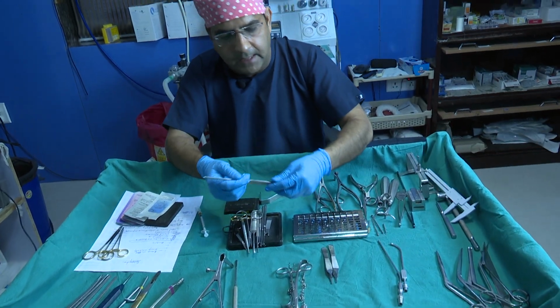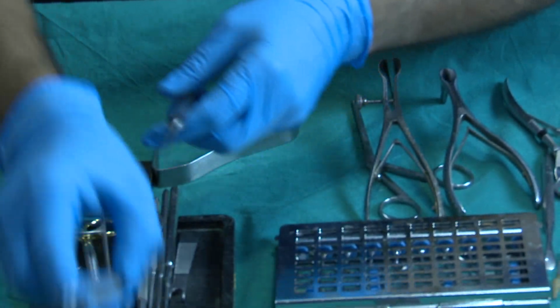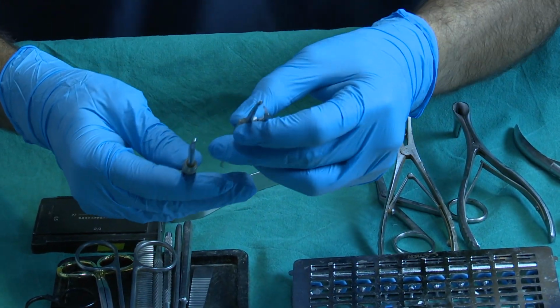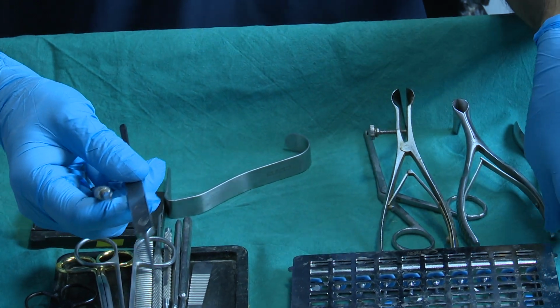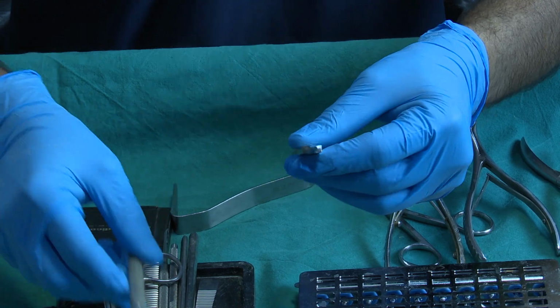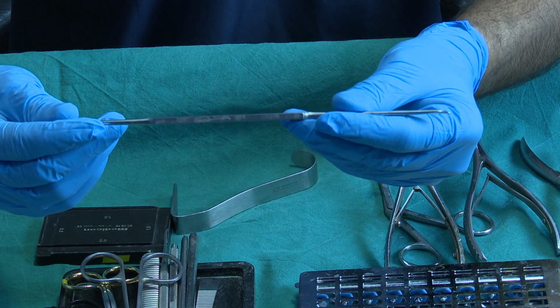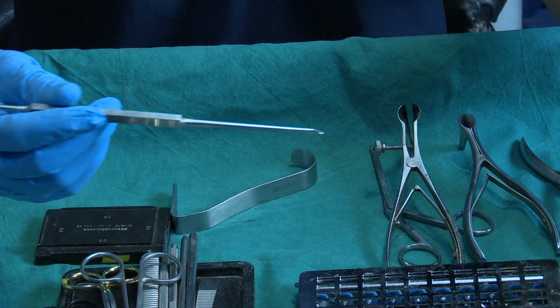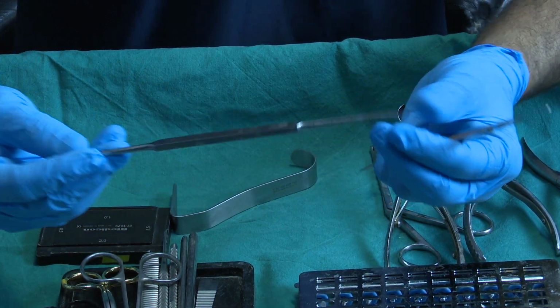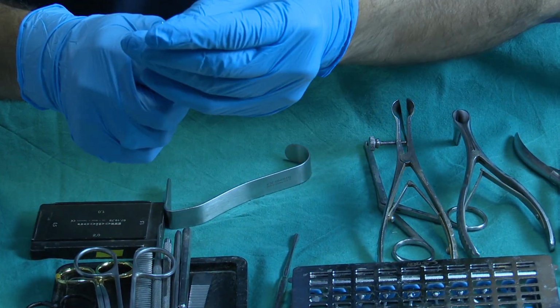And then we have a different type of periosteum elevator, like the Freer's elevator. Freer's elevators and different types of elevators, but I think everyone usually uses these 2 instruments. This is the periosteum elevator from the stores. Yes, this is the Freer's elevator. So the beauty of this instrument, look, is that one side is sharp and the other side is blunt.